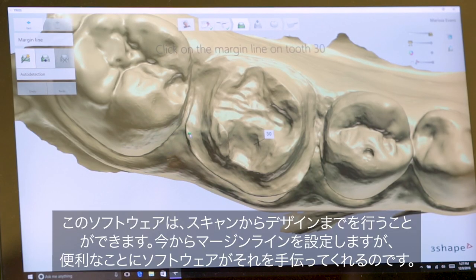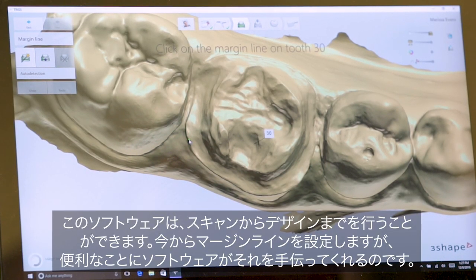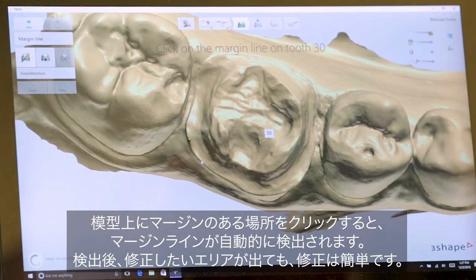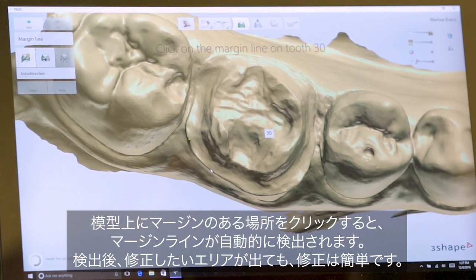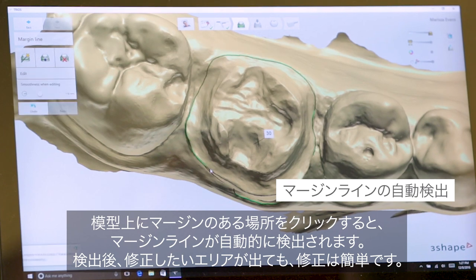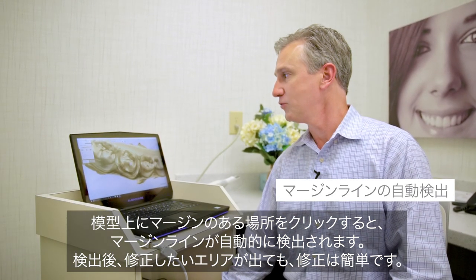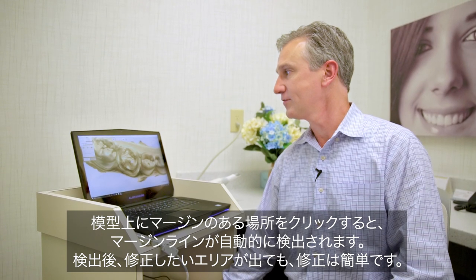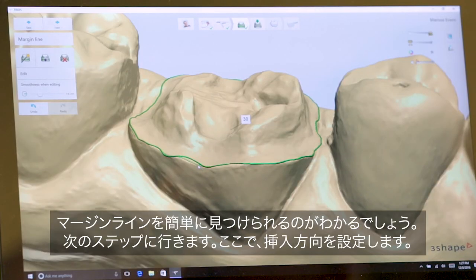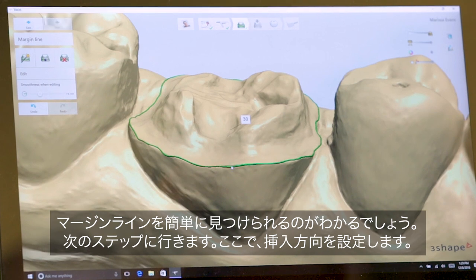We will trace our margin, and the nice thing about this is it does it for you. As we click on the margin, the computer will find the margin for you. You'll see there are some areas that you want to correct, and correction is very simple. You can see the margin is quite easy to find.